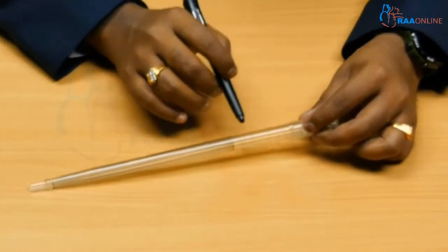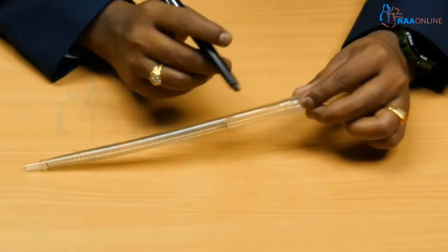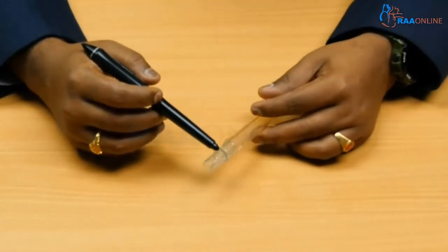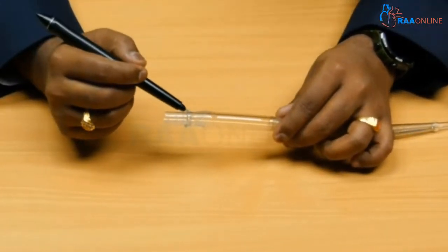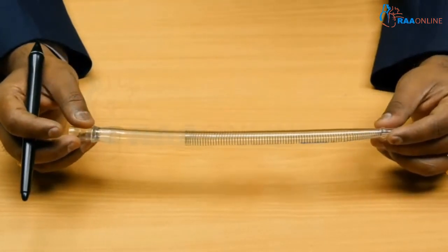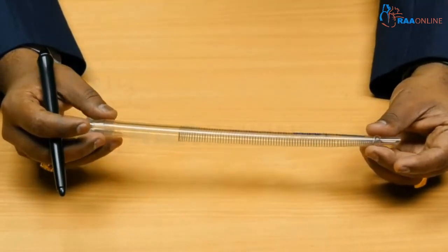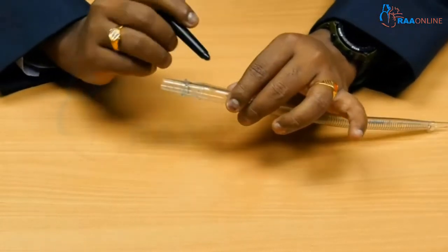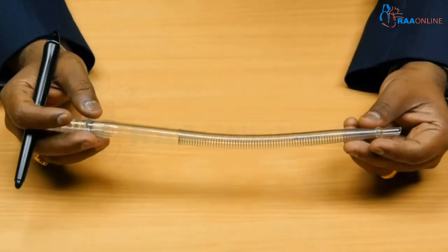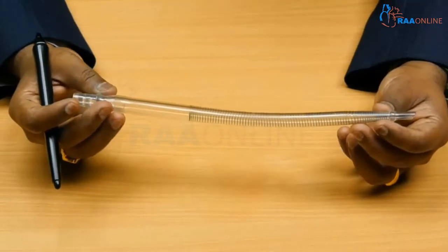There is also a place to clamp the cannula while inserting it, which allows you to keep it clamped, then release and de-air it. Finally, a 3/8 inch connector is attached so that 3/8 inch tubing can be connected to this cannula. This makes it a two-piece cannula. The major issue with these cannulas is that the two-piece connection can get accidentally torn off, leading to accidental disconnection. This is the most common cannula used in the aortic position, placed in the ascending aorta.